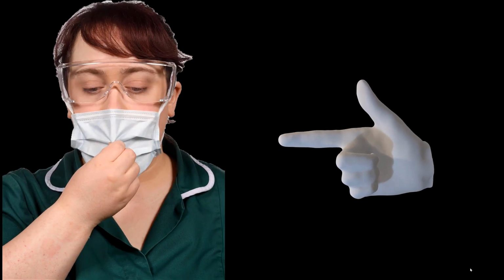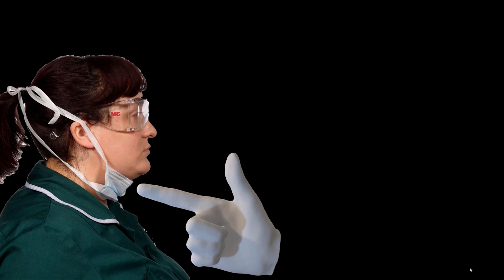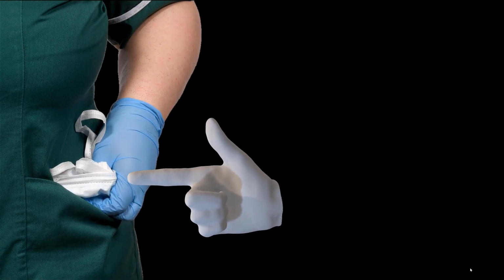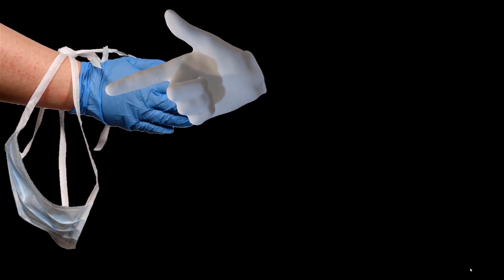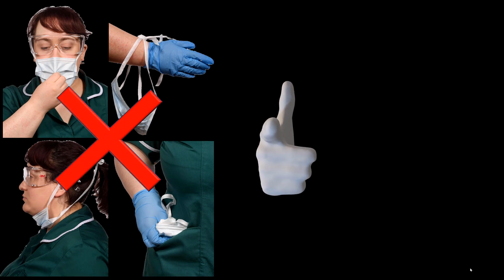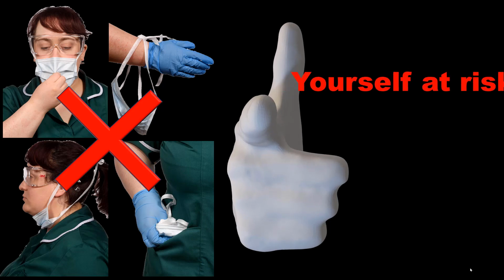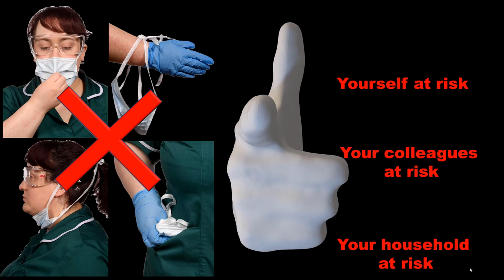You should never touch the front of your mask. Only wear it in the correct position, not allowing it to dangle around your neck. Do not keep a used mask in your pocket or draped on your arm. These practices are not safe and must be avoided. Failure to wear or remove mask and eye protection correctly not only places yourself at risk, it places your colleagues and those in your household at risk.